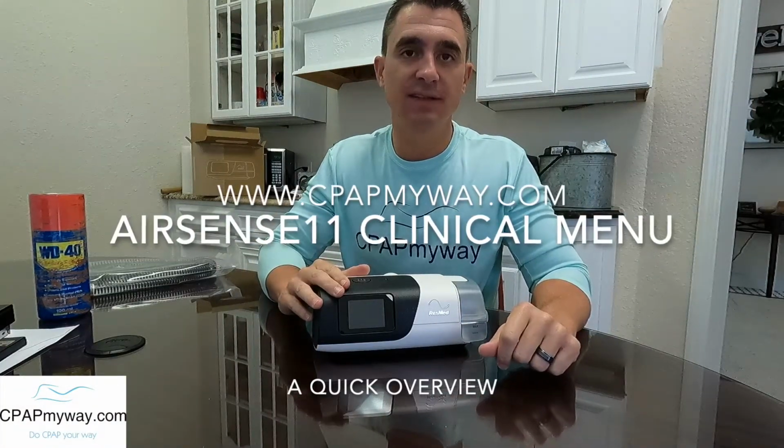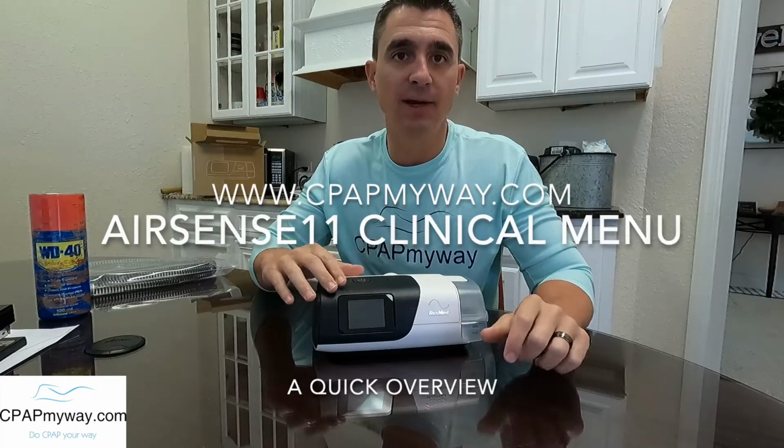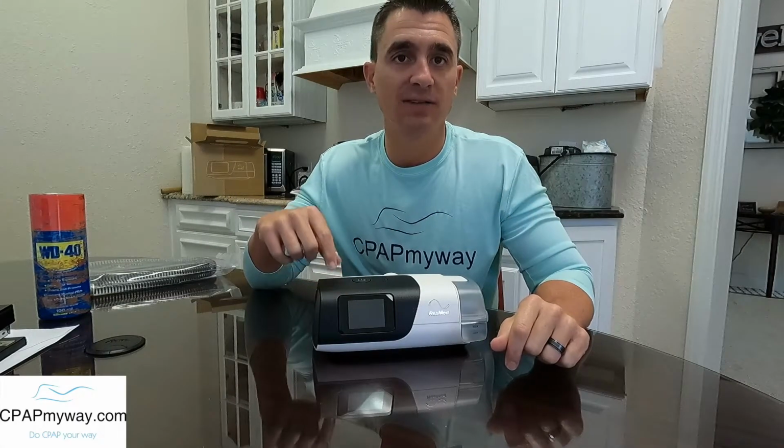Today I'm here to discuss the clinical or provider menu in the AirSense 11. As always on these particular videos, I've got to say, if you're not a clinician, under the supervision of a clinician, or you have no idea what you're doing, stay away from this menu. You can definitely mess some things up. So take that for what it is.